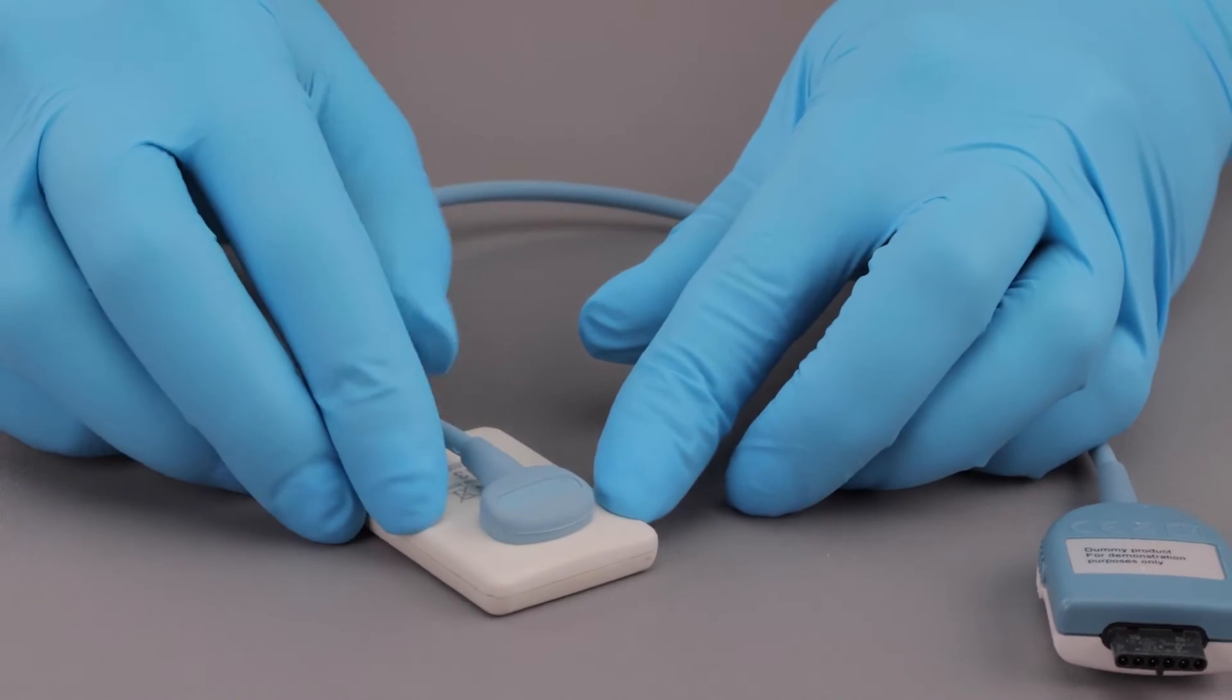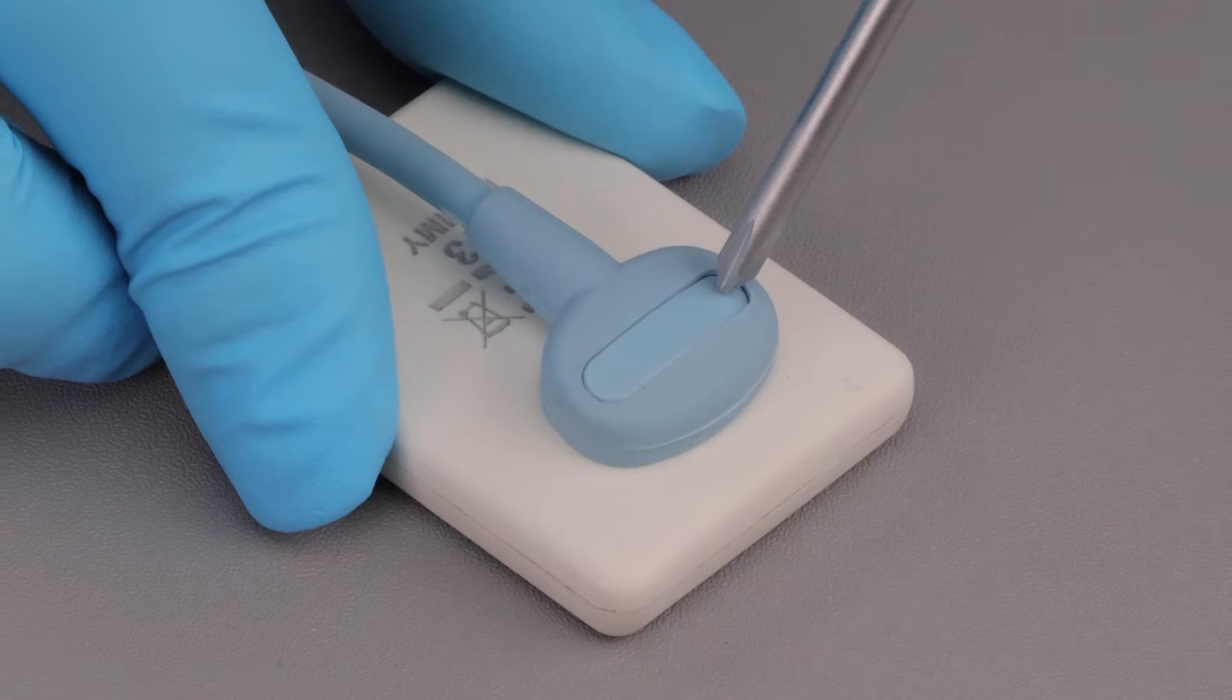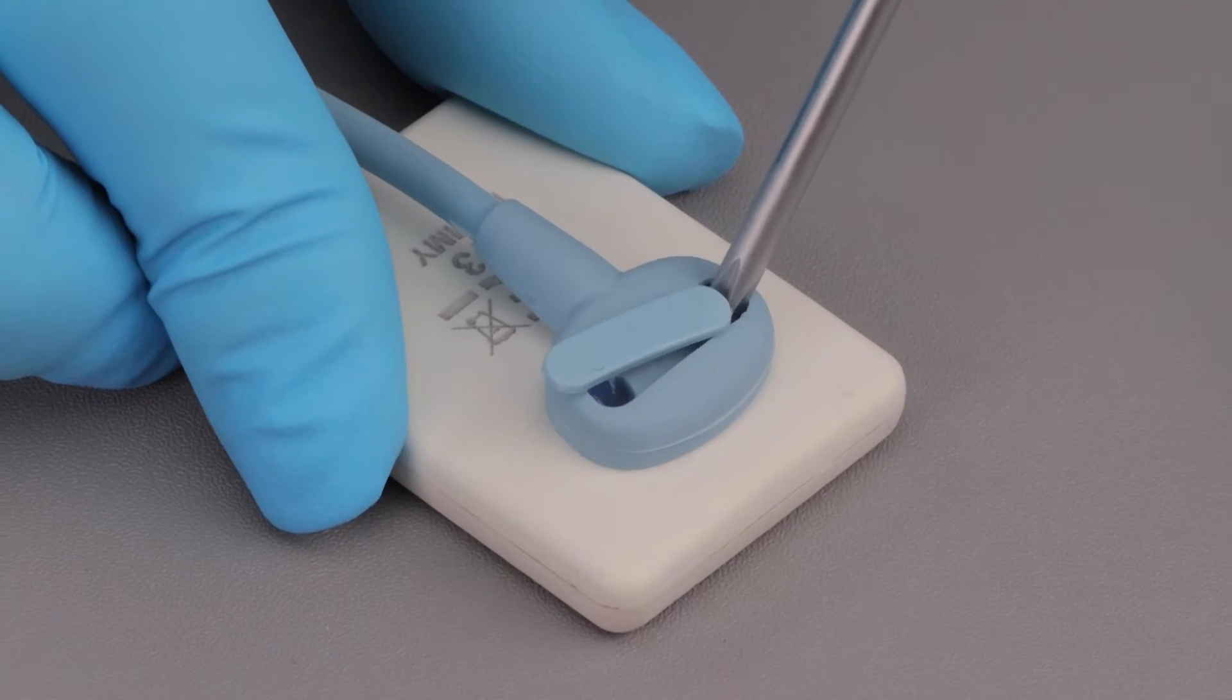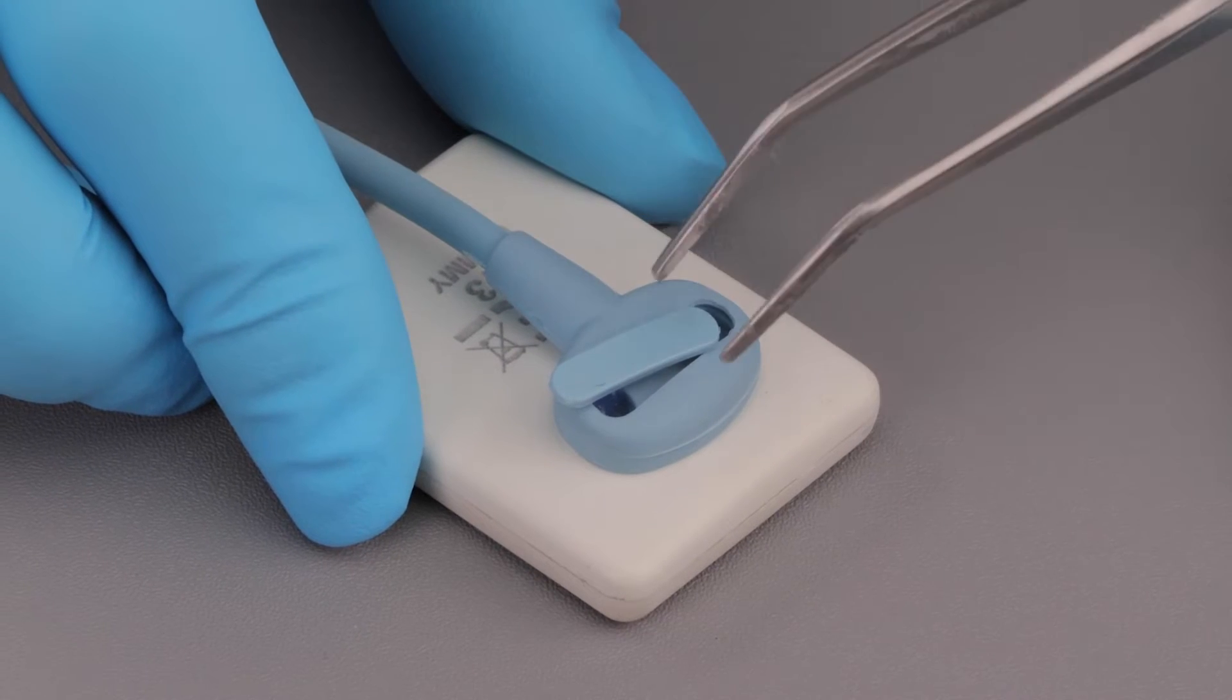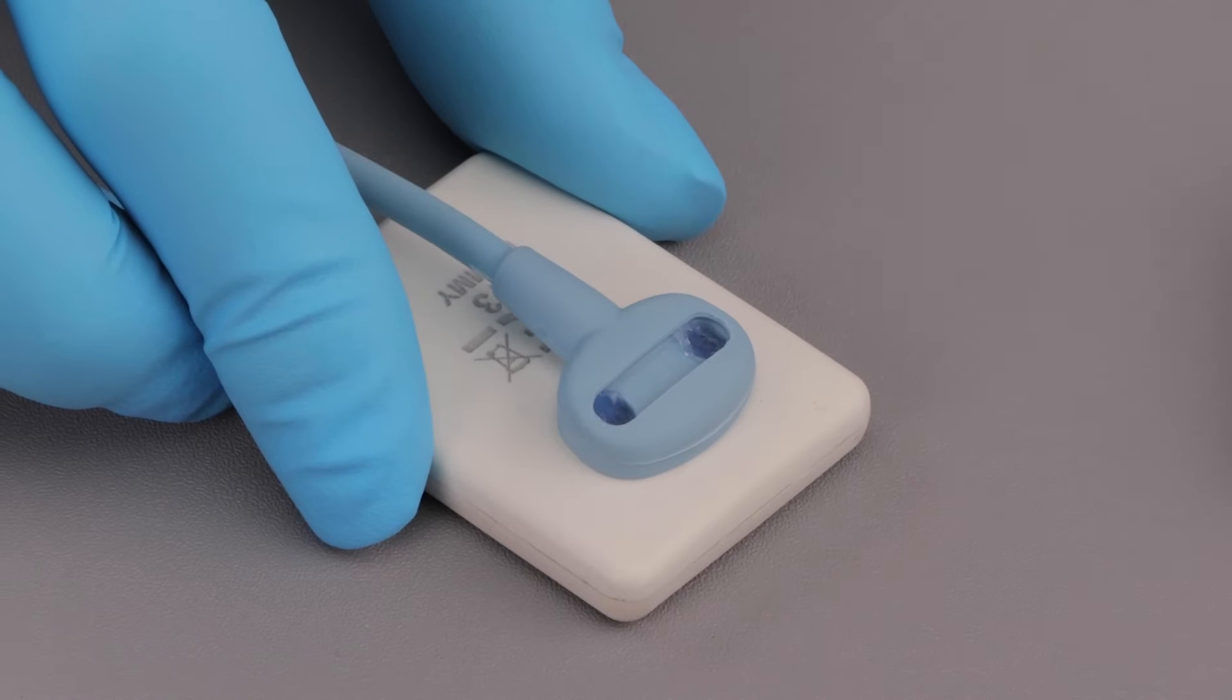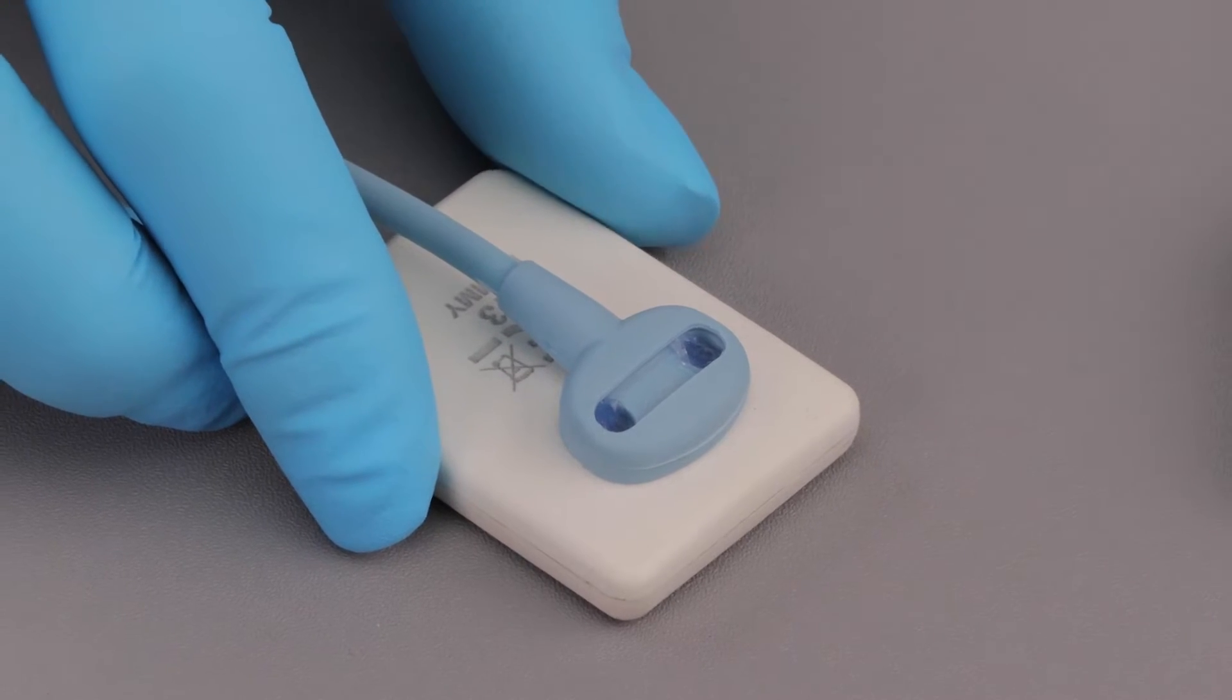Place the sensor on a clean, stable, moisture-proof surface. Next, using a dental instrument or something similar, carefully remove the tab cover from the back of the sensor. You can dispose of the tab cover, as a new one will be used when the cable replacement is attached.